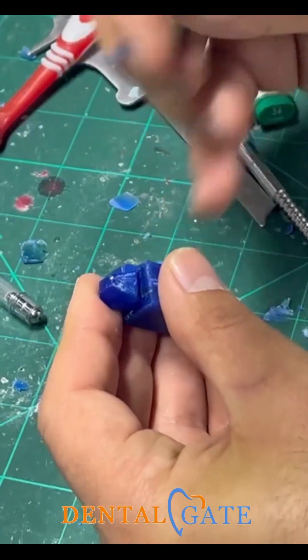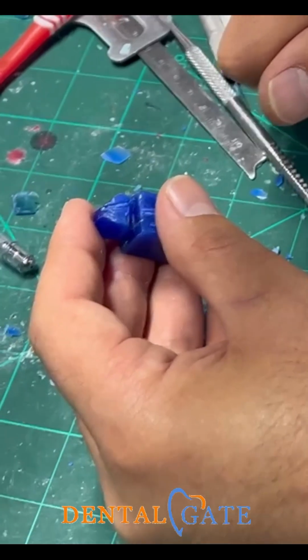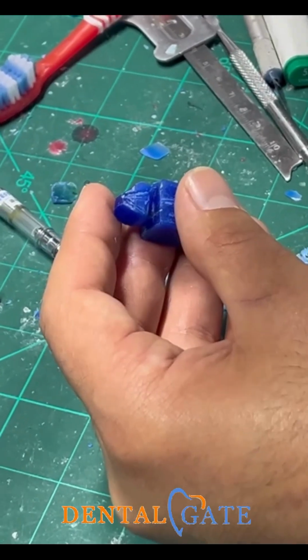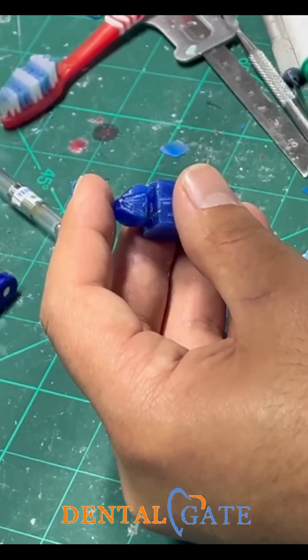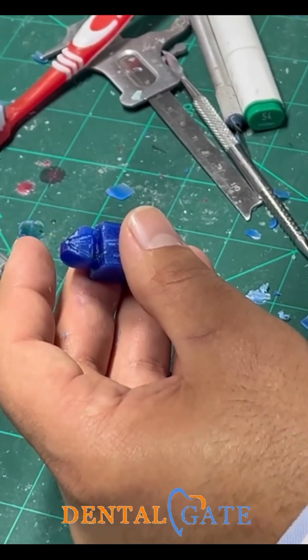At the cervical, we have a minimum width. In the cervical third, when we raise, I have a maximum curvature. So I can make a measurement for this feature. The objective is not the measurement; the objective is the proportion of the teeth.